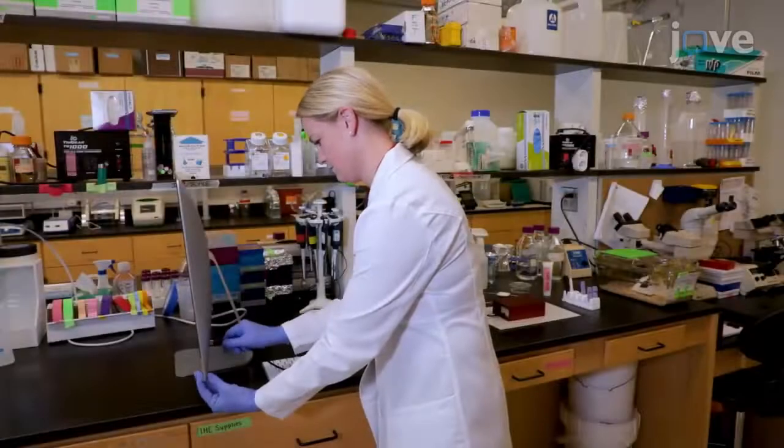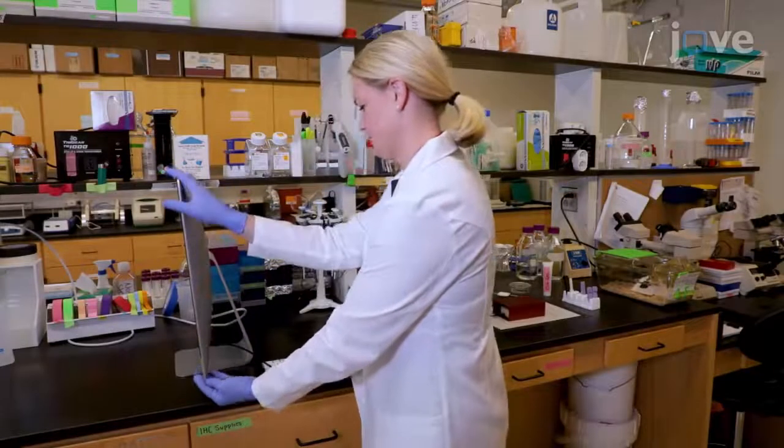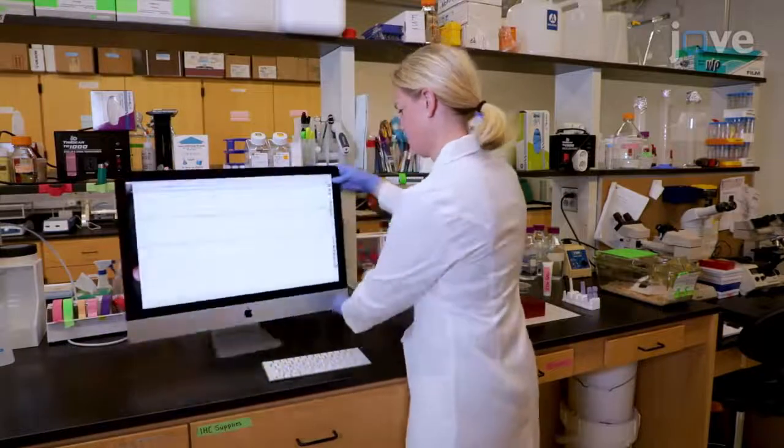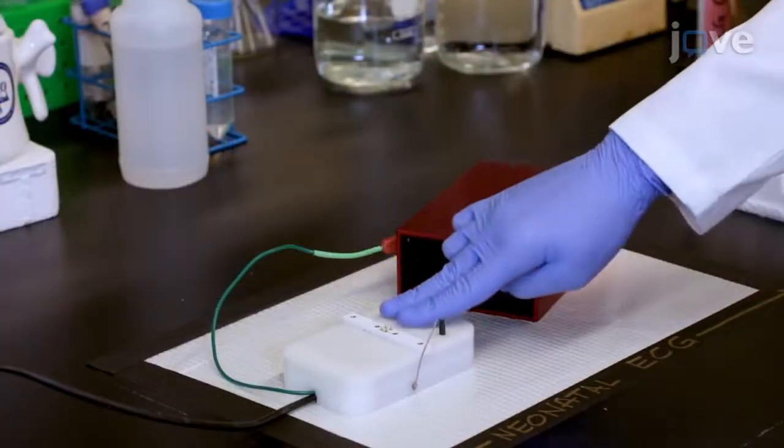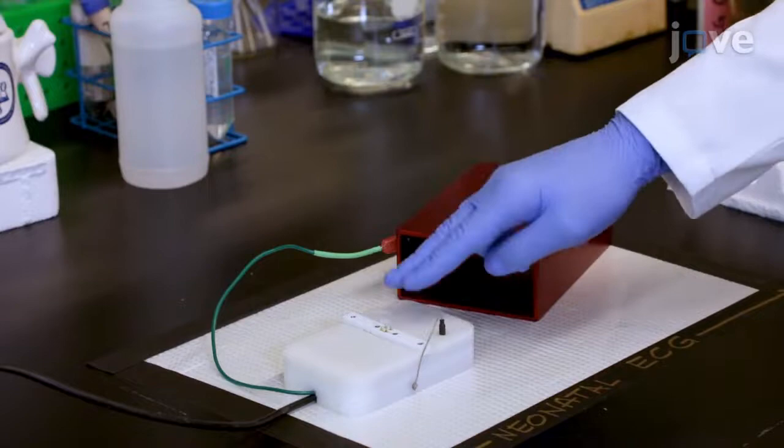To prepare the measuring device for the analysis, plug the device into the USB port of a computer. The measuring device will automatically begin heating up to 37 degrees Celsius.